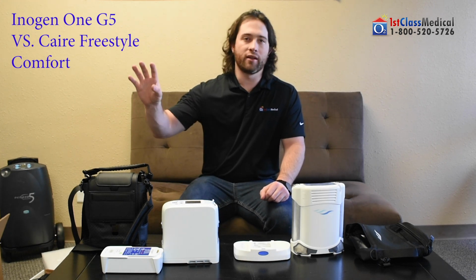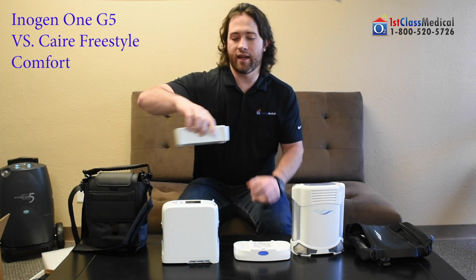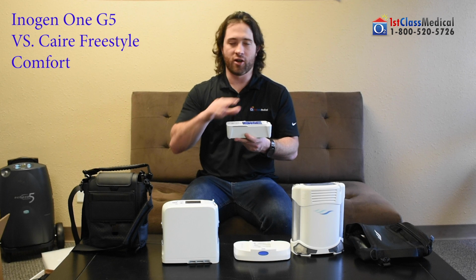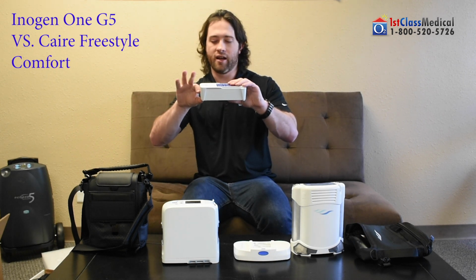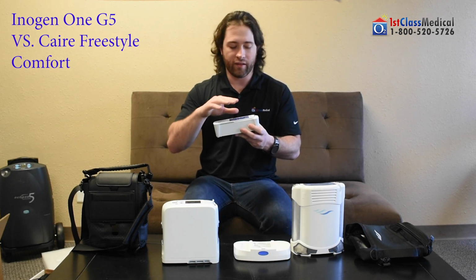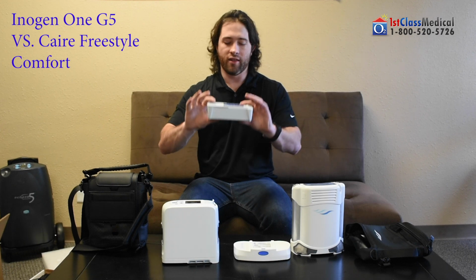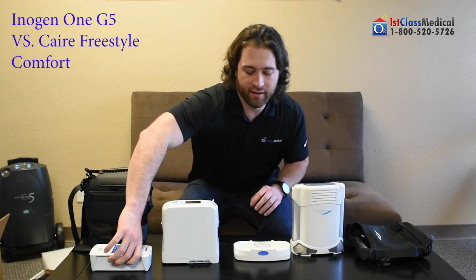Inogen's carrying on what they've been doing for a good while now. There are 2 different types of batteries. That being said, I like to make it simple. I always call it small or big battery, or single or double battery. They get real technical. It's called an 8-cell and a 16-cell battery. This is a 16-cell battery. The 8-cell would be about half the size, but about half the battery life. With the 8-cell battery, you're going to get 4 hours on a setting of 2. On the 16-cell battery, you're going to get 8 hours on a setting of 2.